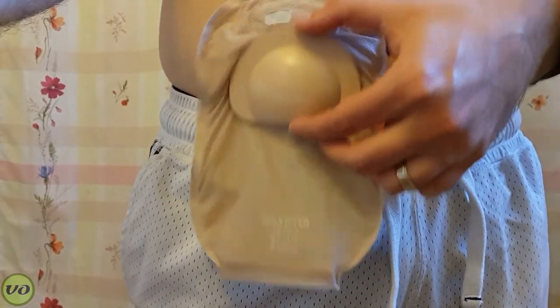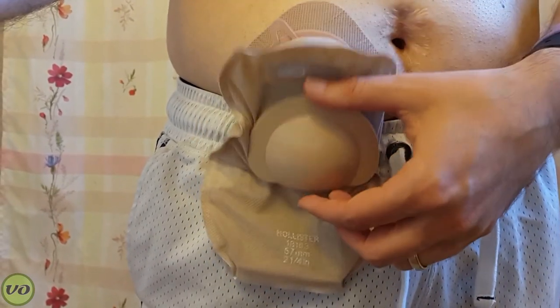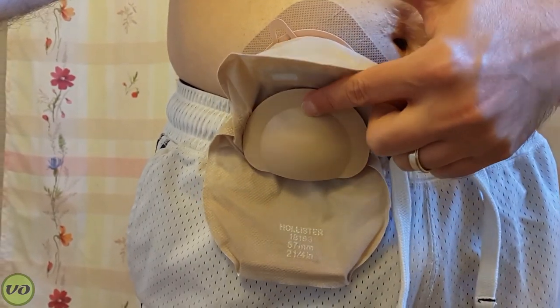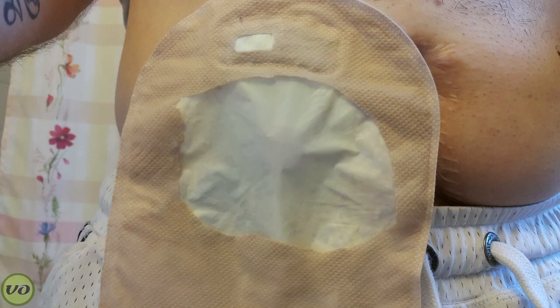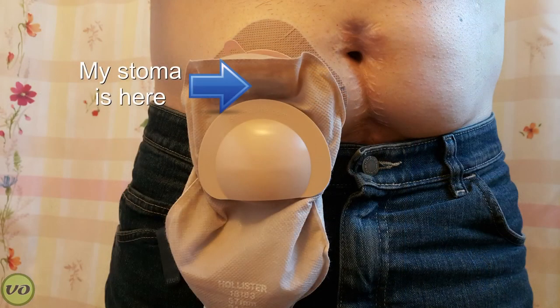The movement is especially noticeable when I'm wearing an opaque pouch — one that has a cloth cover on it — and you can see in the video here a demo of exactly what happens. To work around that situation, I basically cut the fabric away in the spot where I'm putting those stickers, and that seems to mitigate it a bit, but it still is a bit of an issue.